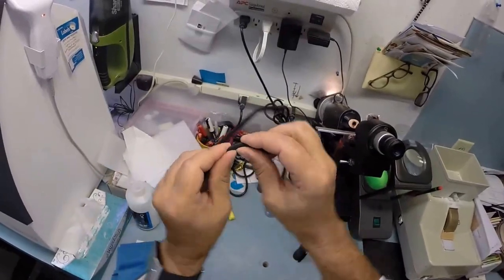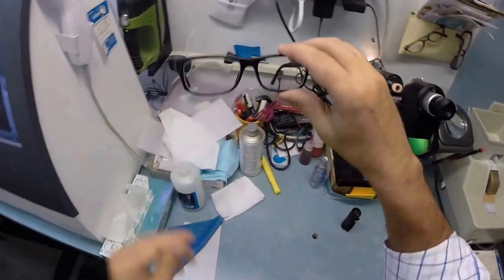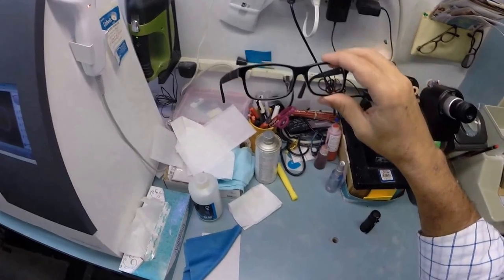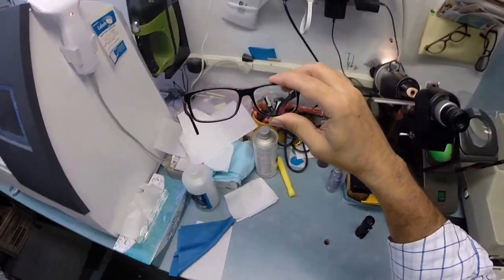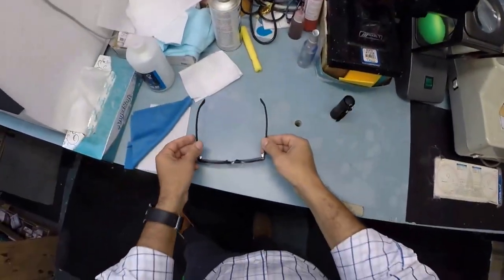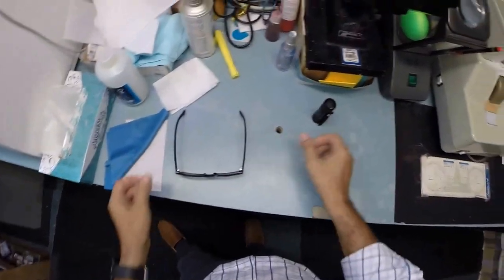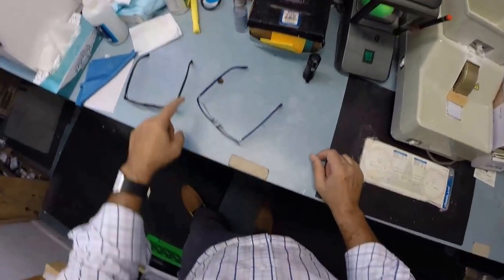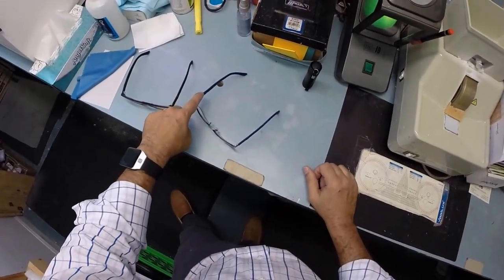Although with these rubber temples, you can adjust these yourself. But still, nonetheless, it wouldn't hurt to have a professional do it. But I'm going to get these in standard alignment first, also known as a three-point stance. The three points are one, two, and the bottom of the frame being three. I set it on the counter and press down. There is no wobble.